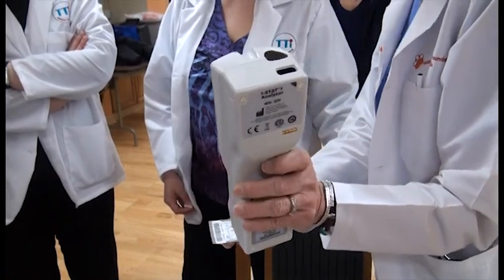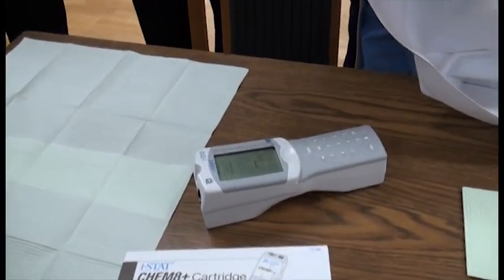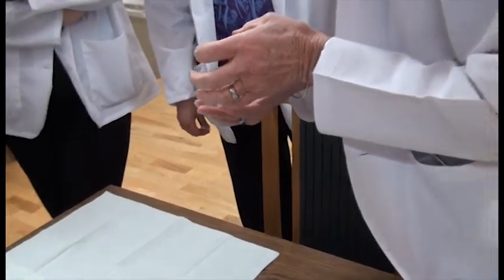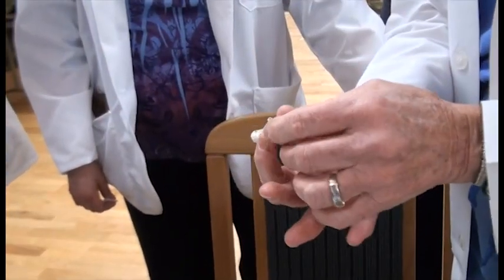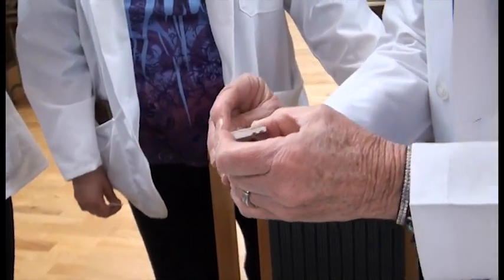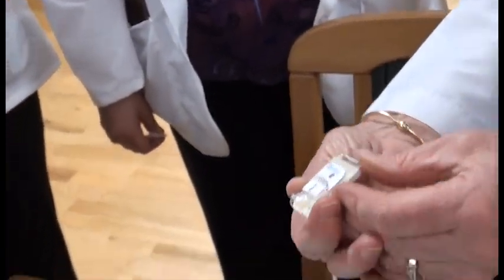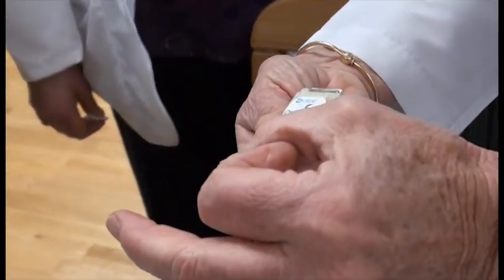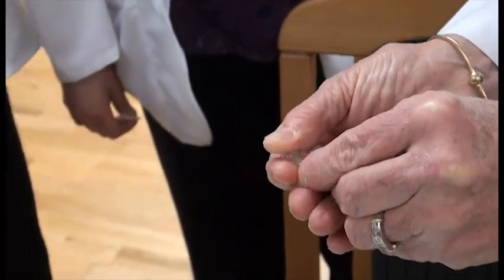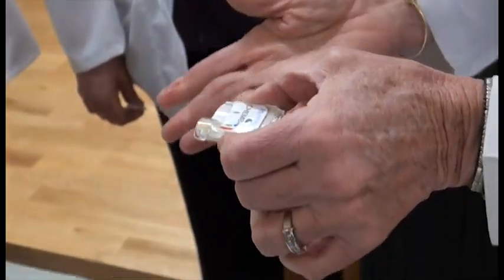The number was captured, and now it says insert cartridge. This is what the cartridge looks like. Of course, you'll be wearing gloves when you do this. The well of the cartridge is right here. You're going to take a very small amount of blood and fill this well up to and including the circular area right here, being careful not to overfill it, because if you overfill it, when you close the door, it will rupture the cartridge and you'll get an invalid result.